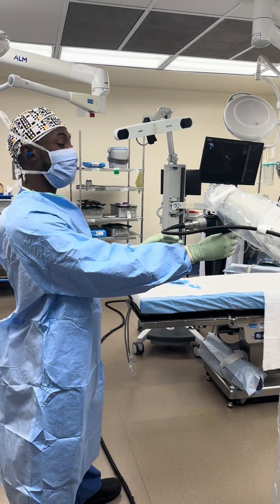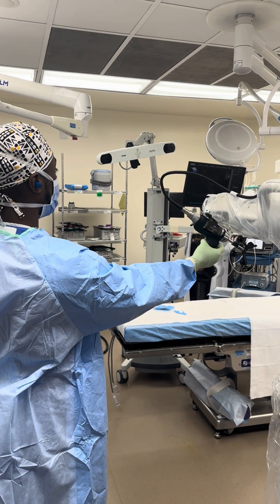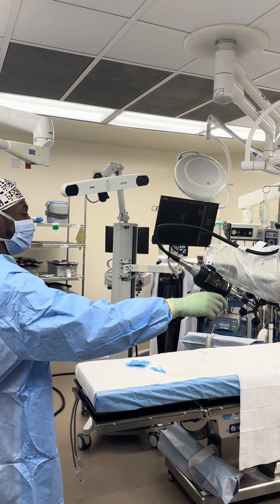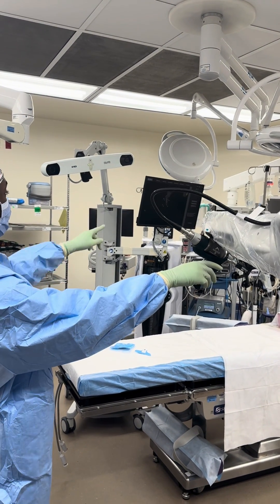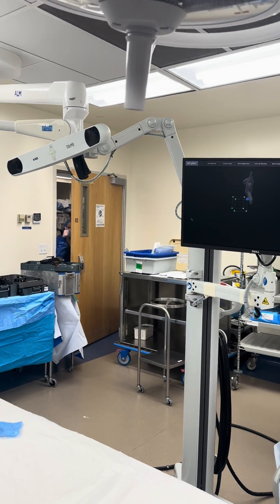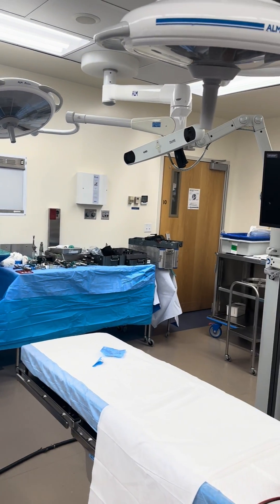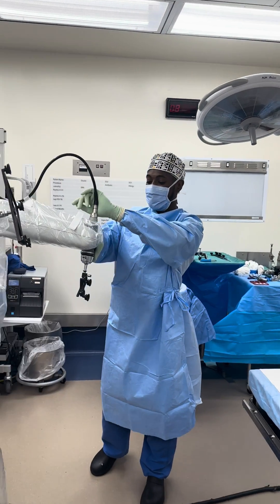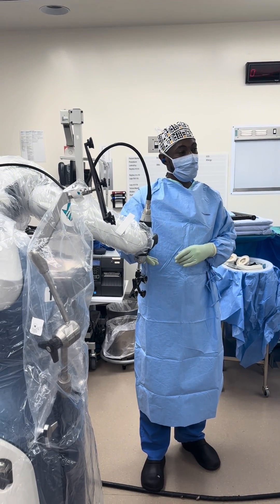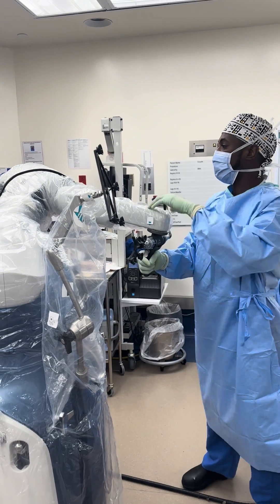Flip the handle over and make sure the discs are facing the camera. Hold on to the handle so it goes to 100%. Now it uses the registration to make a 3D box — you can see it on the screen like a box. After the box, put the handle facing down, flick it — double tap it. Then flip it to 120 degrees. That's the first part of the registration.